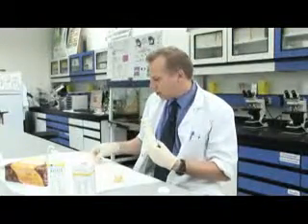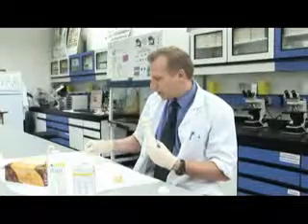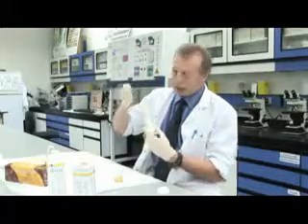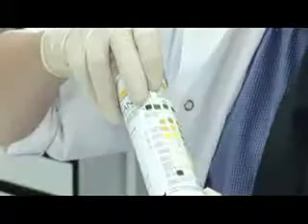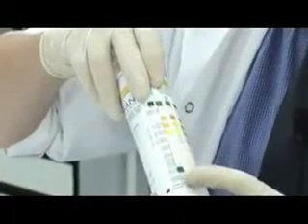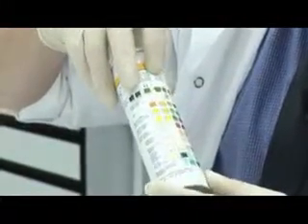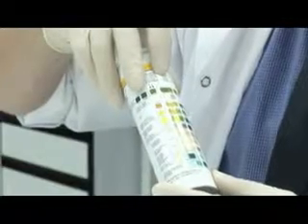Okay, I think that's probably had enough time now. We're getting a strong colour reaction there on the end. So if we hold it up to the vial like this, and then we look along it, making sure I've aligned the squares properly, I'll start at the bottom. We've got quite a strong blue colour down there.